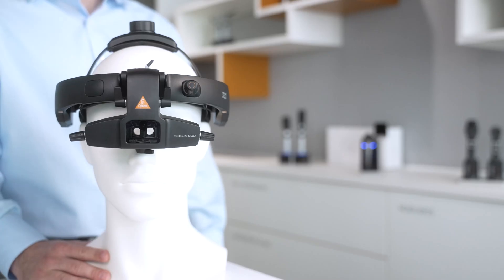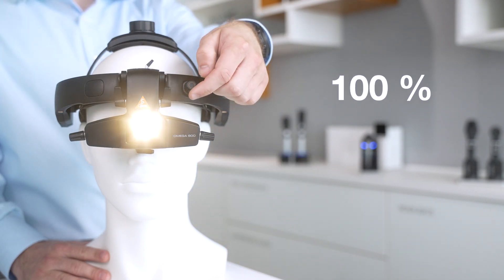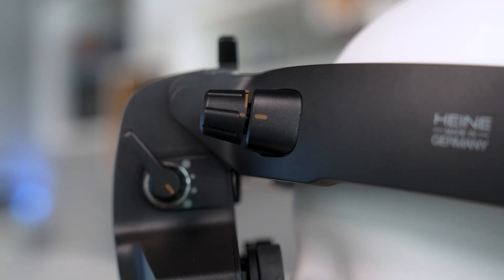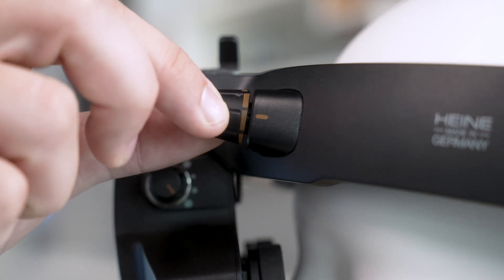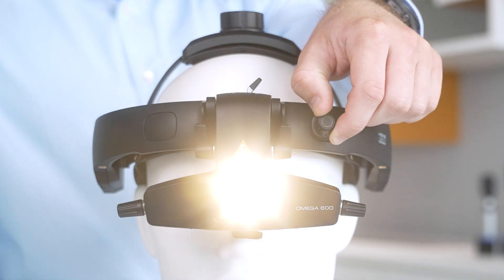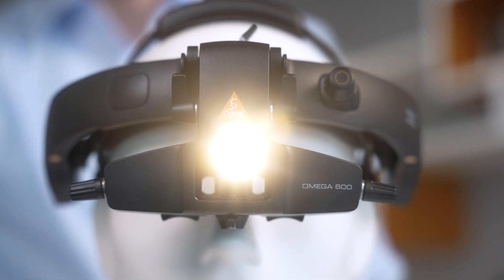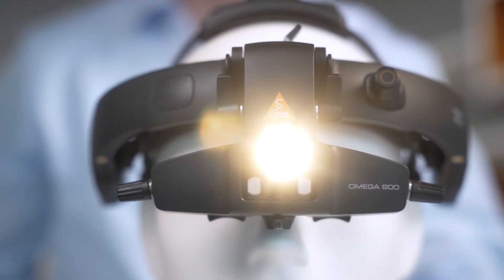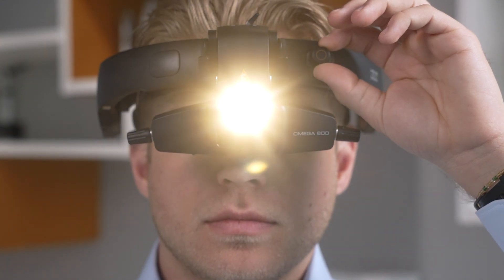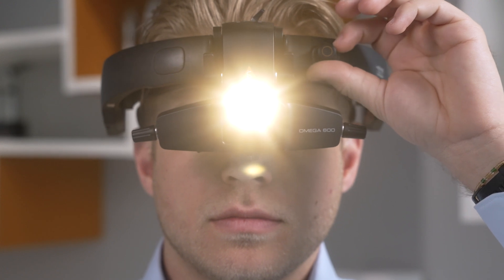Let's turn on the device using the brightness control dial. You have stepless brightness control to adjust from 3% up to 100%. Once you hear that first click, you're at full standard illumination. Beyond that click, you activate Heine's Vision Boost feature, which will increase the brightness up to 245% of the standard illumination, while staying completely photobiologically safe for the eyes. This can make a big difference when examining patients with media opacities, like cataracts, and will help you visualize more retinal detail when treating these patients.